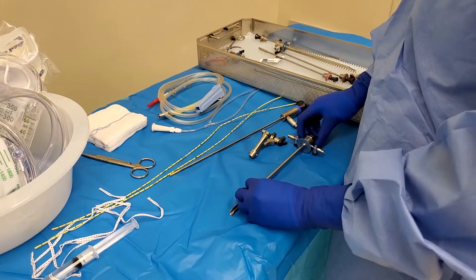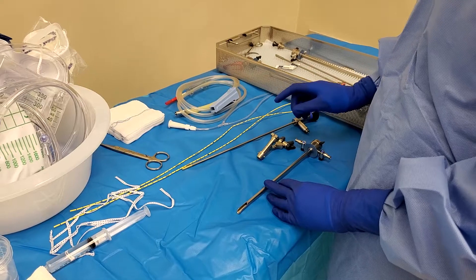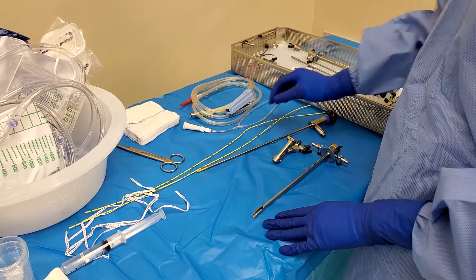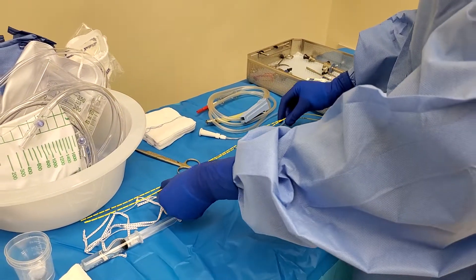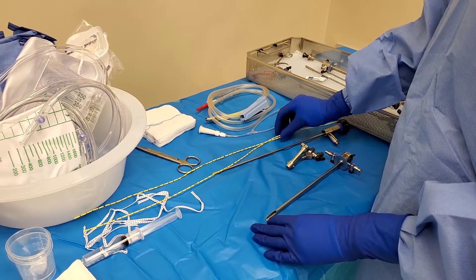This case is for a left colectomy stent placement. I know it says left colectomy and you're thinking we're only going to use the left ureters, but actually we're going to need to put two stents in there so that when we're inside the belly, we don't accidentally cut the ureters.